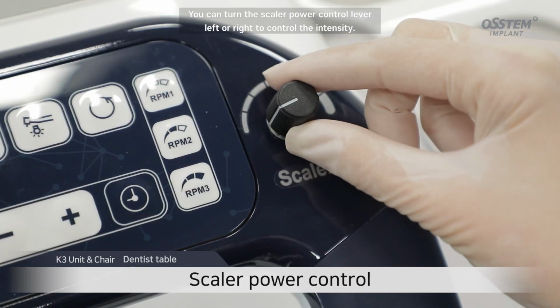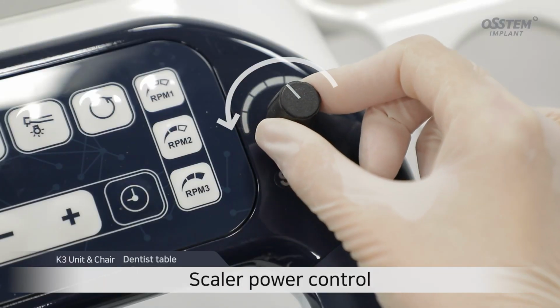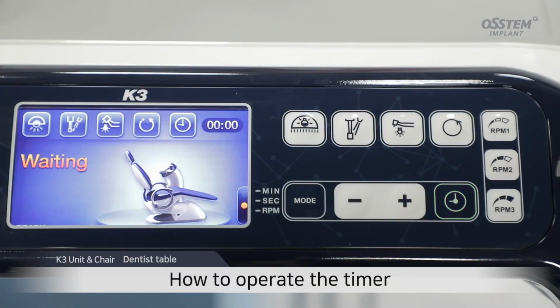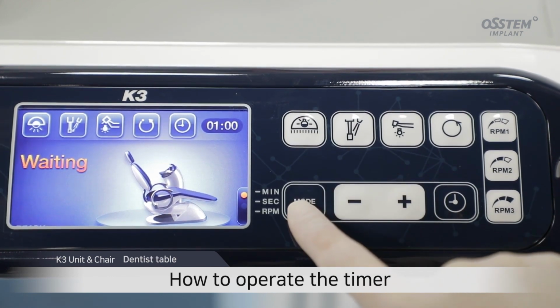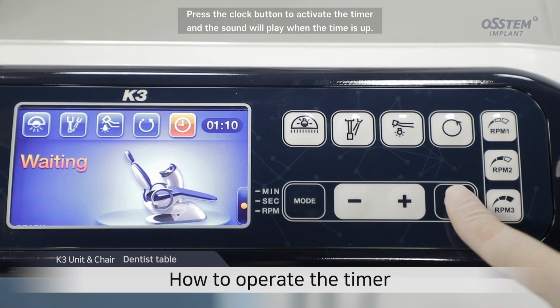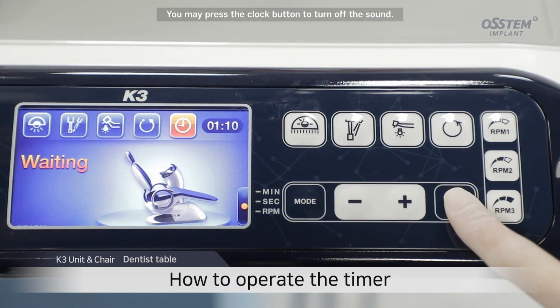You can turn the scaler power control lever left or right to control the intensity. To operate the timer, press the mode button and set minutes using the up and down buttons in MIN, and set seconds using the up and down buttons in SEC. Press the clock button to activate the timer and the sound will play when the time is up. You may press the clock button to turn off the sound.